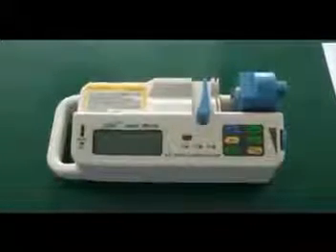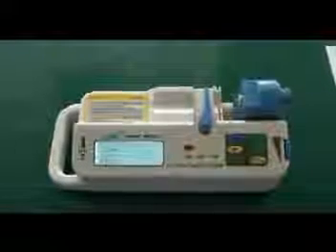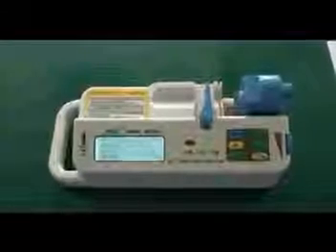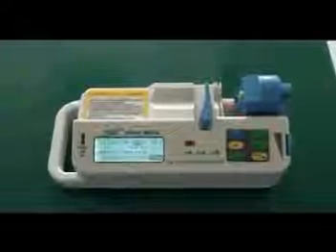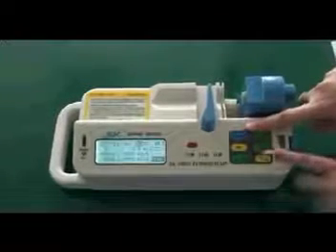Step 3. Install the syringe for calibration or specification setting. Firstly, press the power key to start the syringe pump. Secondly, press clear and set keys together to enter into the interface of parameter setting.